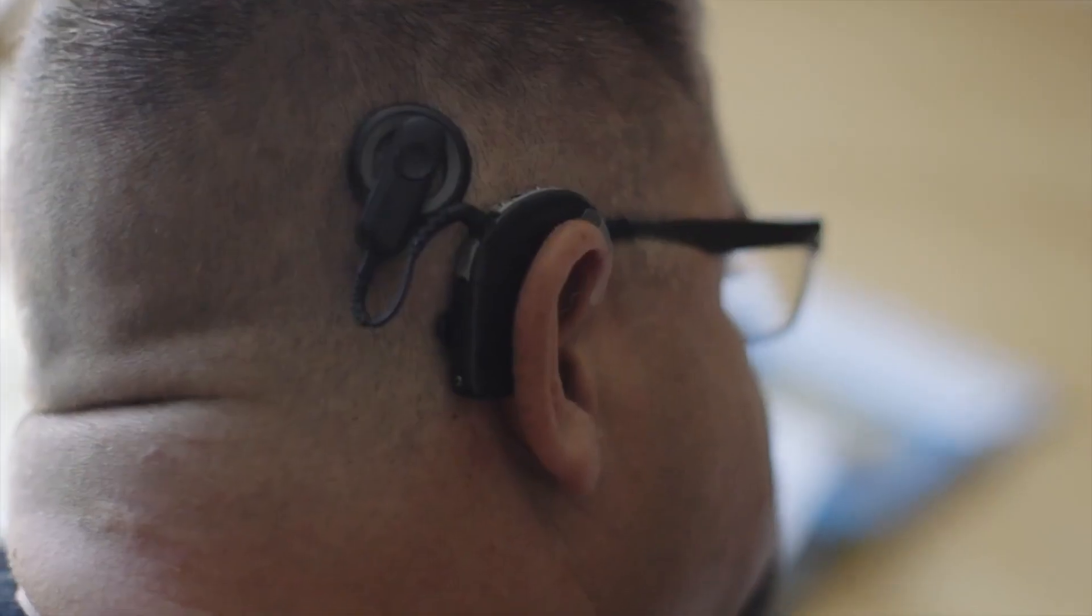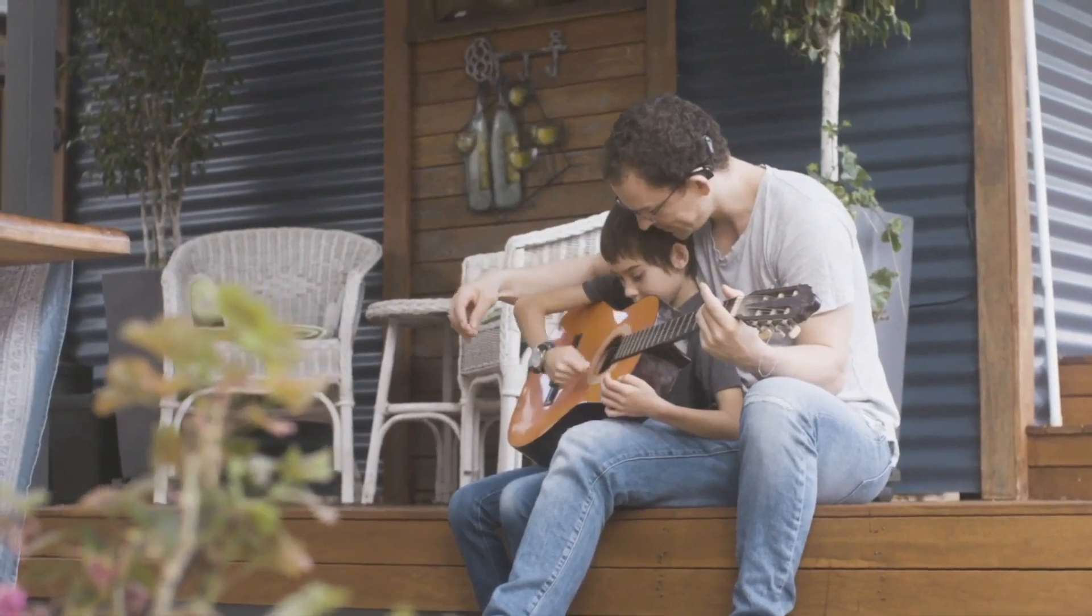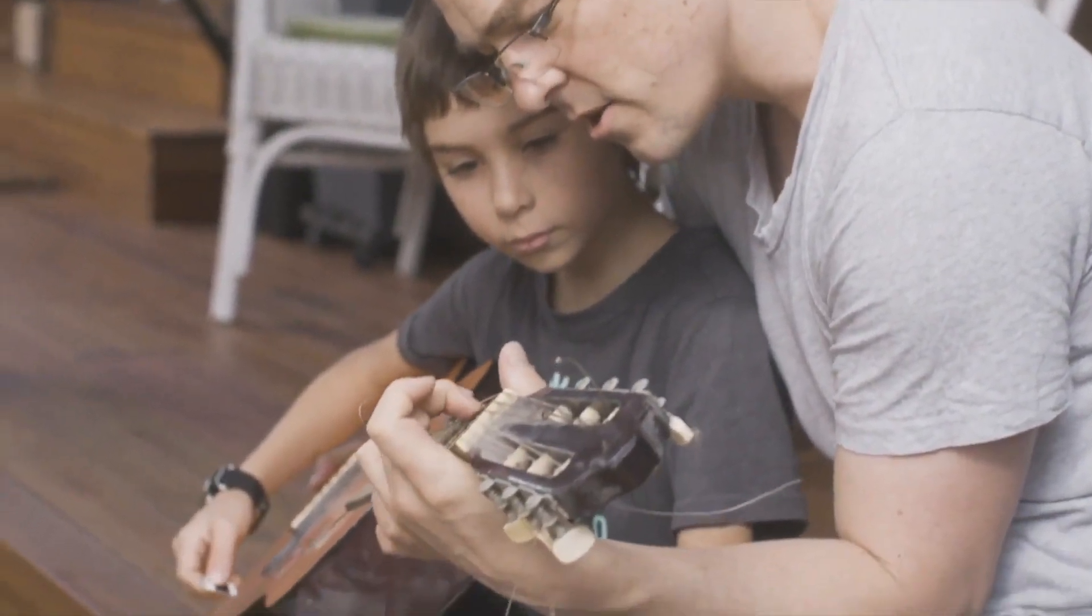Unlike hearing aids which can only make sounds louder, cochlear implants replace the function of damaged or missing parts of the inner ear and can make sounds louder and clearer.